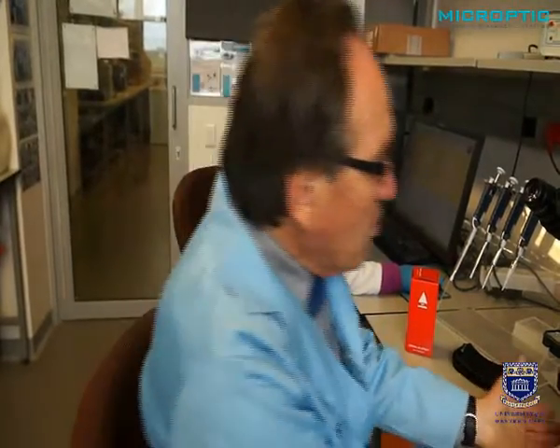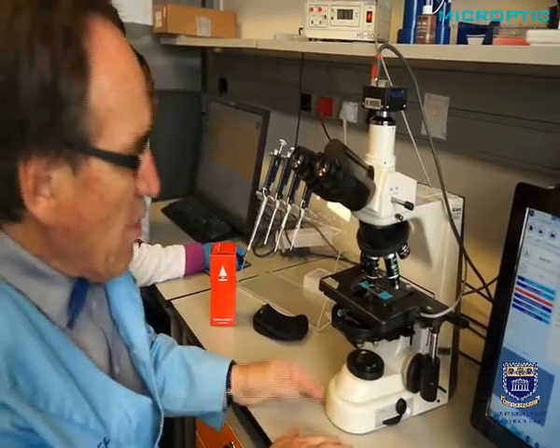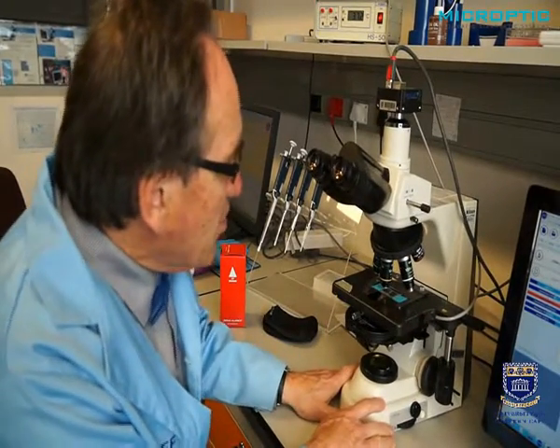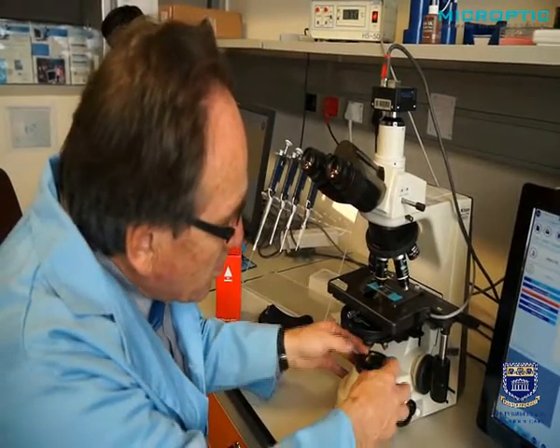Okay, now that I've shown you the basic requirements for a CASA laboratory, which is indeed very simple, but one must be very thorough about it, we can go into the details of specifically computer-aided semen analysis. And let's start off with the details of the microscope. So we're going to concentrate here on all the components that are required really. So one needs a really good, solid compound microscope. In this instance I'm using a Nikon E50i microscope, and it is fitted with, first of all, a very good halogen source.